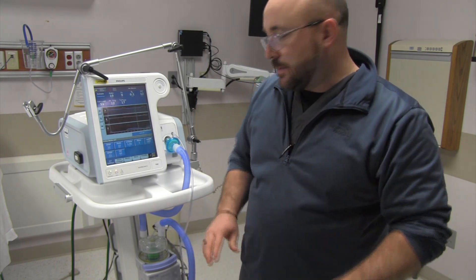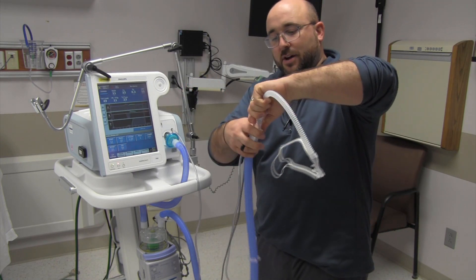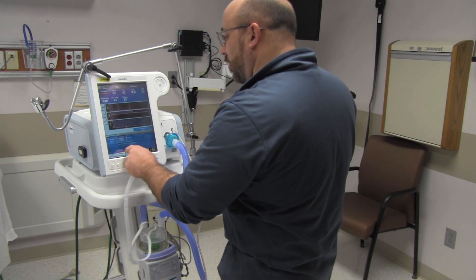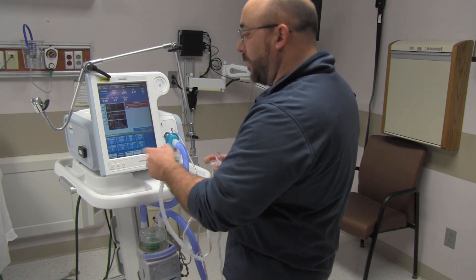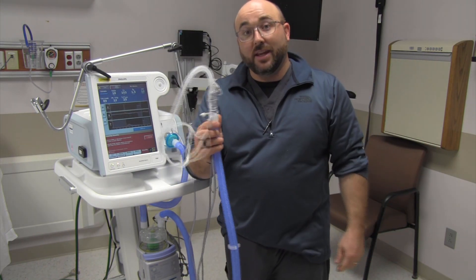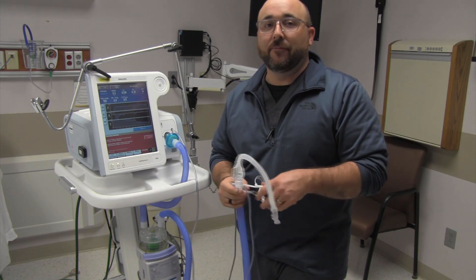Here's the great aspect: your patient goes on this, and then needs to go back on their mask — maybe they go to sleep or finish eating. With one device, this cannula comes off, I attach the mask right here, and now they have a heated wire circuit for their mask. The really important part: go back in and change your alarm settings — turn your alarms back on to what they were before. Put them back on ST with the mask. So we flip them over, plug the mask in, give them the high flow cannula, take them back to the mask. One device doing both things — and they have that heated wire circuit both ways.